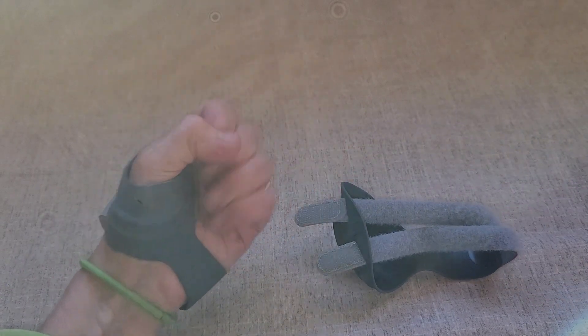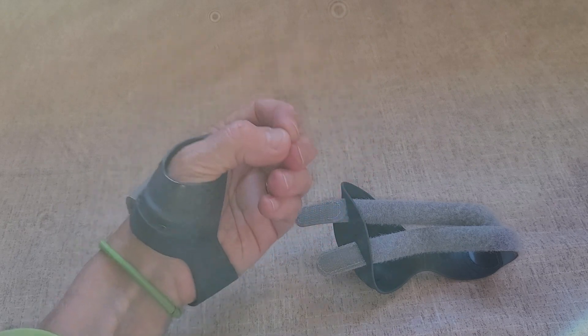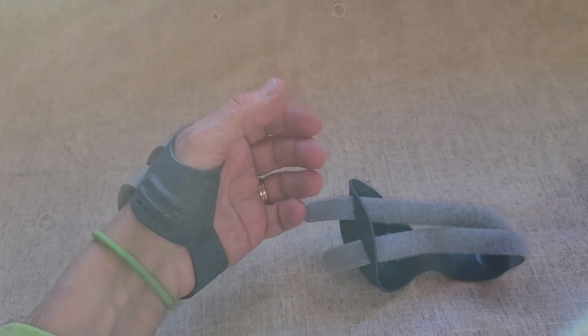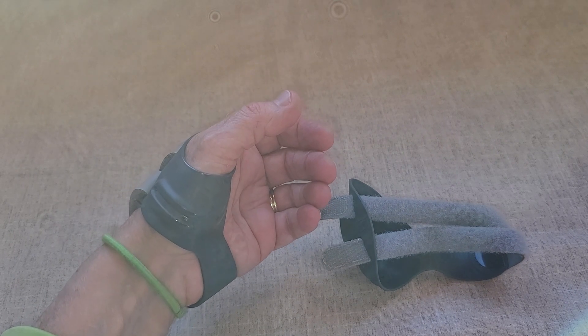What I found is I can still use my hand. It doesn't restrict my grip at all. If you try to put a nitrile glove or latex glove on top, it does take up a little more room in the glove, so it's a little harder to get the glove on.